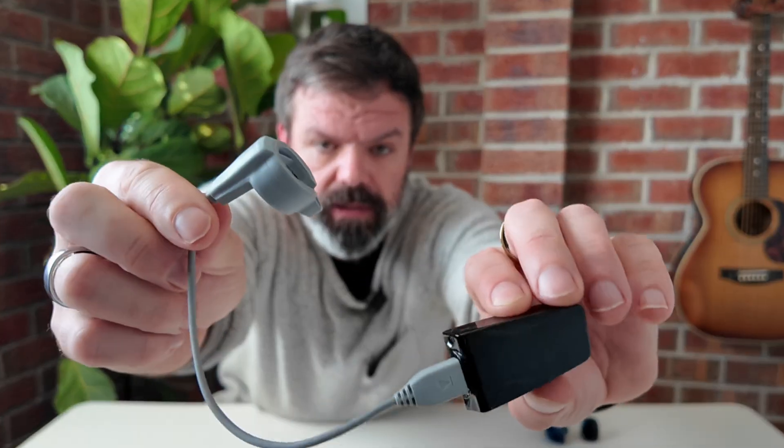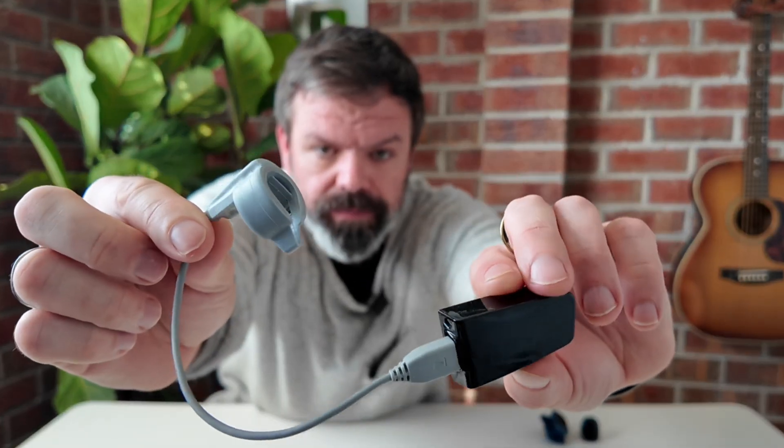Same goes with this. This is an OxyFit, same thing, compatible with Sleep HQ. Doesn't matter where you get it from. Same with this one here. This is the Check Me. Normally, it's got like a little band where you put that, and that goes on your finger.